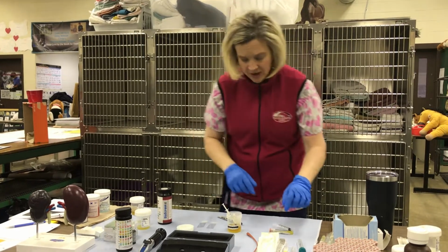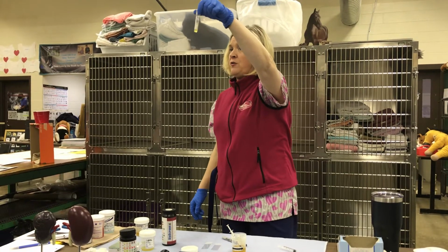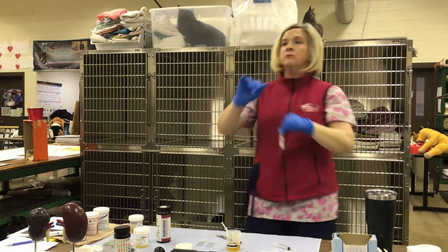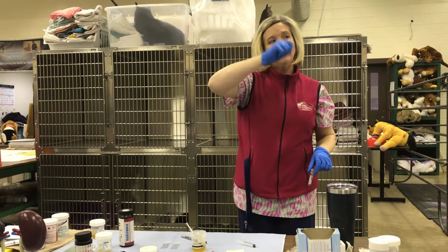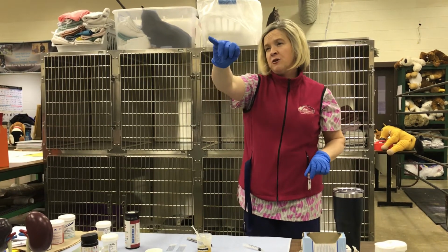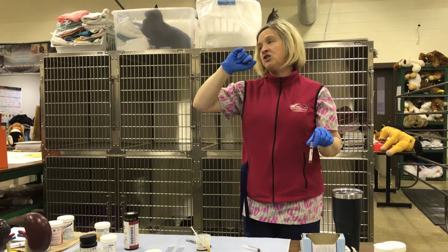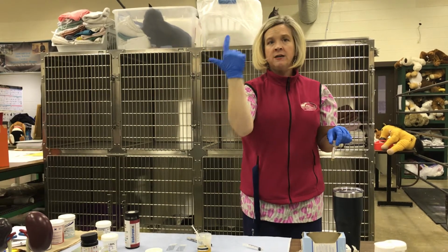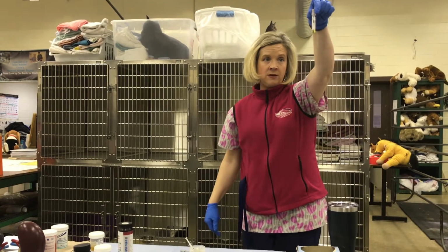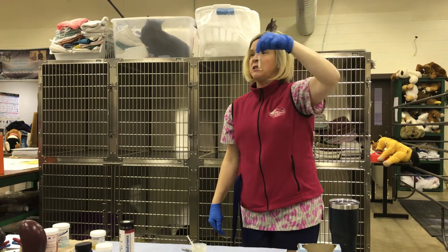All right, now we're going to take this sample and spin it down, so it has to go into the centrifuge. In that machine, you need to make sure your centrifuge is turned to urine. Our centrifuge has numbers on the front that let you change it from blood to urine to feces. I've changed it to urine, which is what you're going to run this on. Let's pretend that I've already spun this.